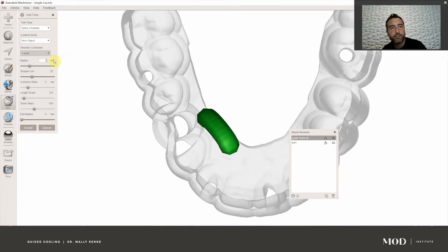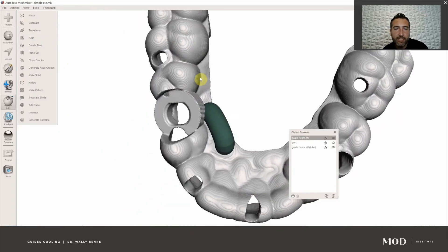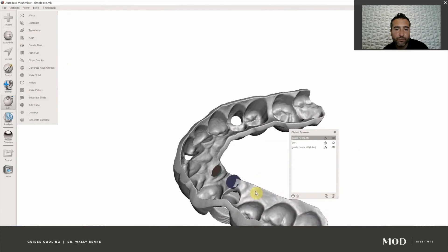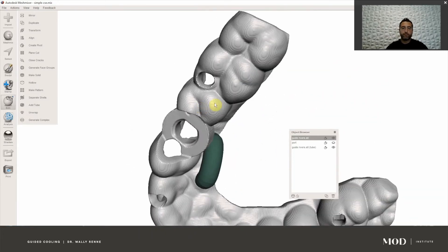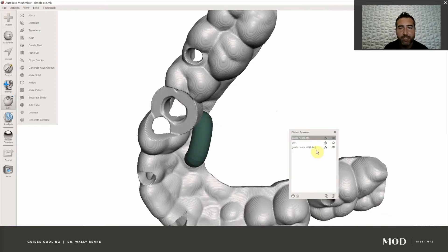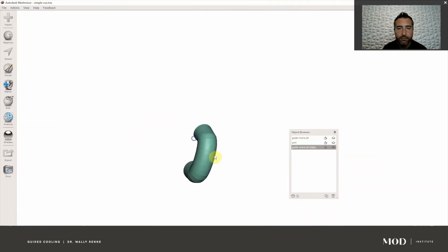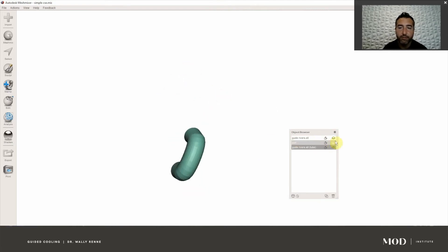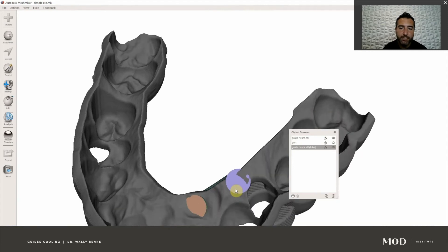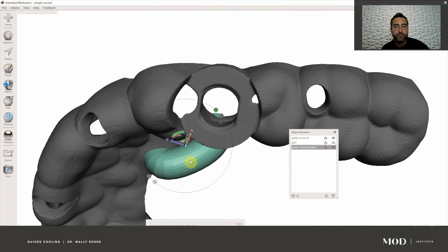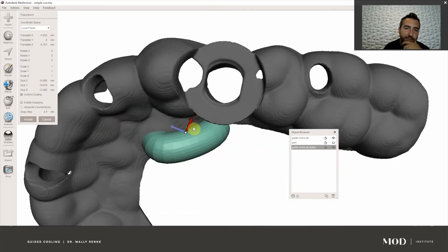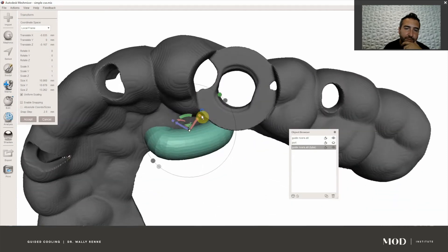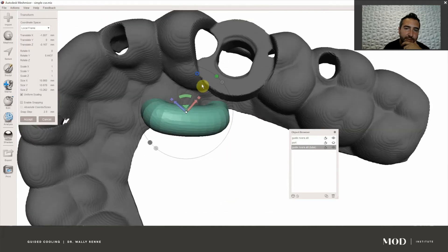I like to do new object. Radius: 2.5 millimeters — type in 2.5 (not 0.5, but 2.5) and hit Accept. Now what that did is we have a tube, nothing fancy. What we can do from here is we have a separate object. Here's our tube all by itself — it's not hollow though, that's one of the problems, and it interferes with our guide seating.